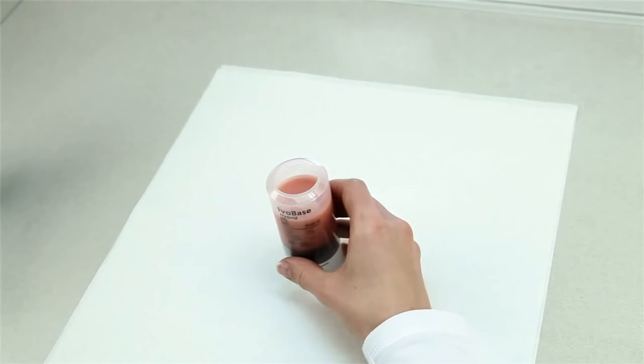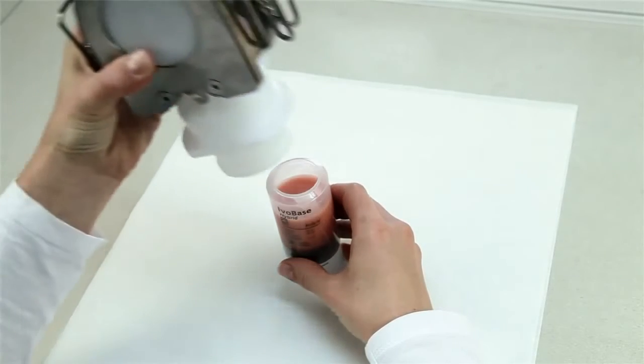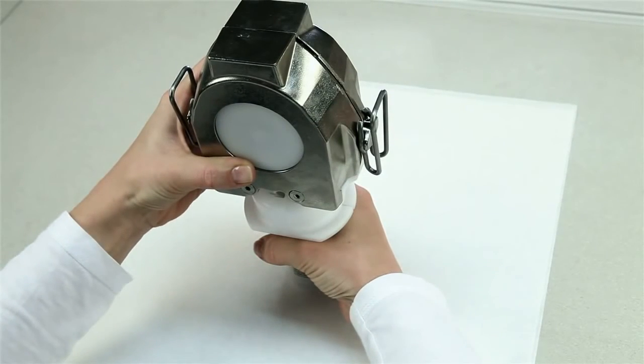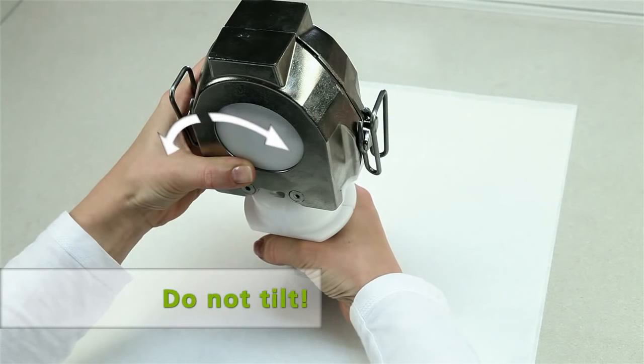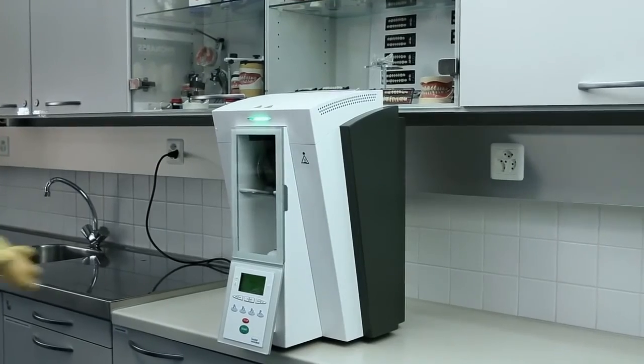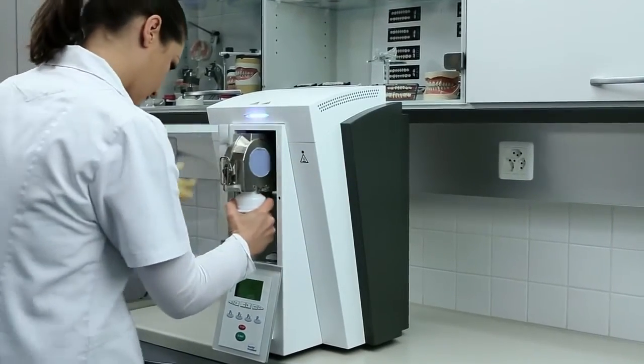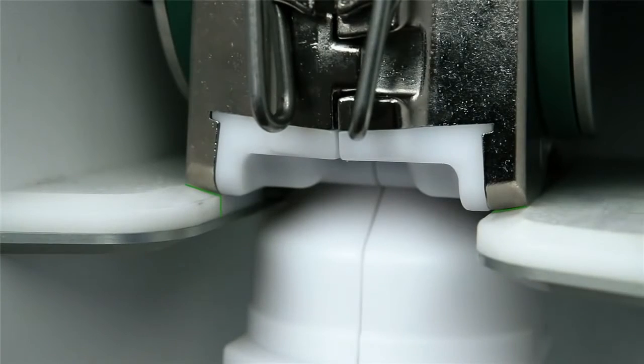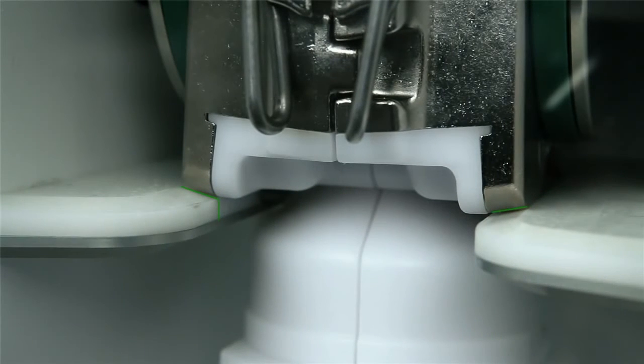Place the open capsule on an even surface. Position the centering insert with the flask on the capsule and press down. Do not tilt the capsule with the flask anymore to prevent the material from flowing out. Slide the flask with the capsule into the polymerization chamber until it stops via the flask holder. The flask perceptibly snapping into place indicates the correct position.